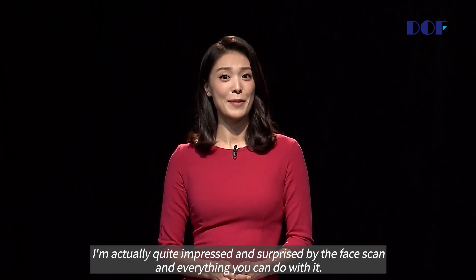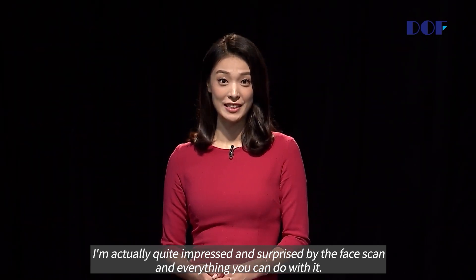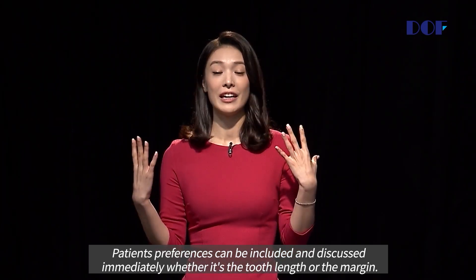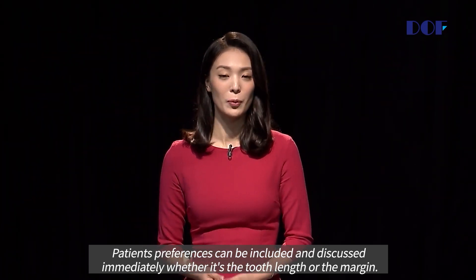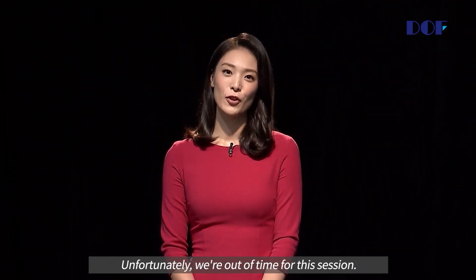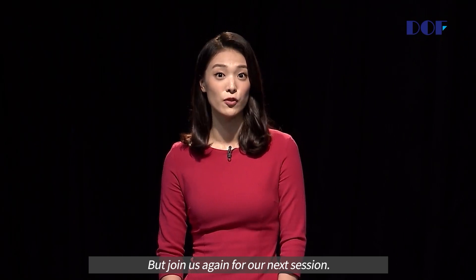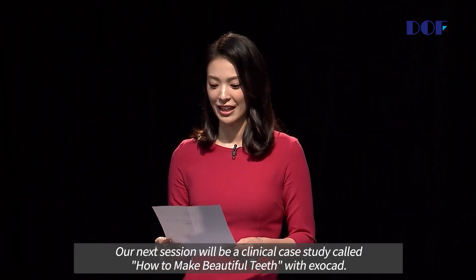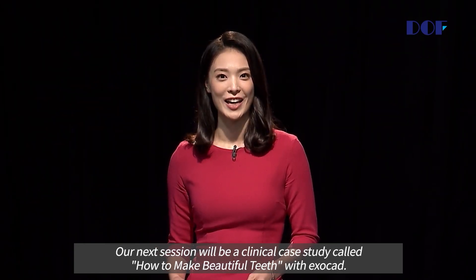Thank you, Dr. Wu. I'm actually quite impressed and surprised by the face scan and everything you can do with it. Patient preferences can be included and discussed immediately, whether it's the tooth length or the margin. Unfortunately, we're out of time for this session, but join us again for our next session. Our next session will be a clinical case study called 'How to Make Beautiful Teeth with ExoCAD.'